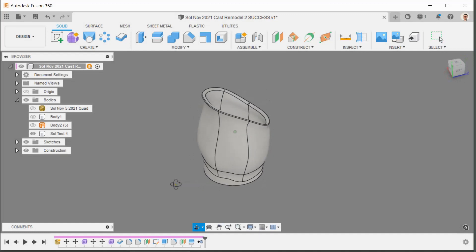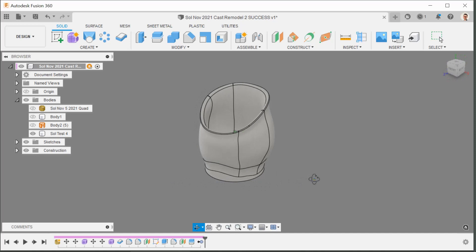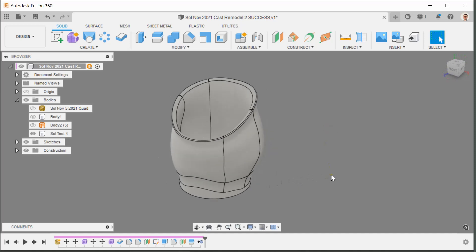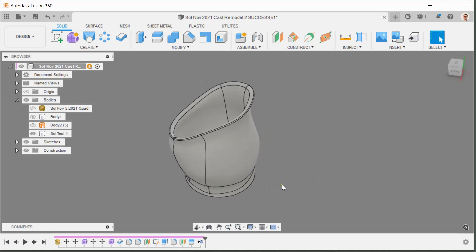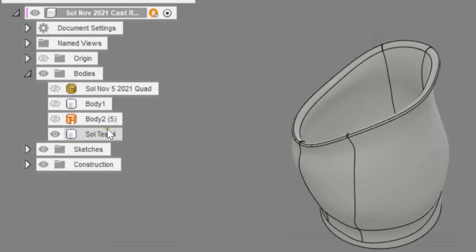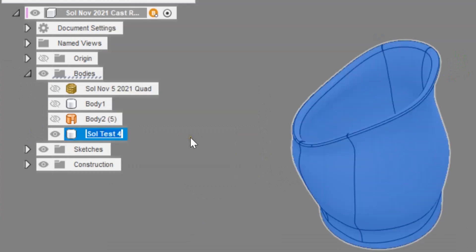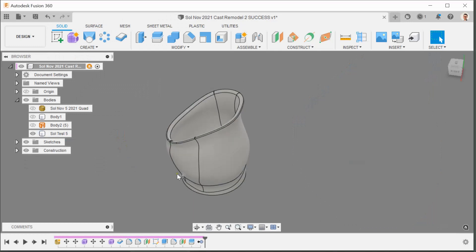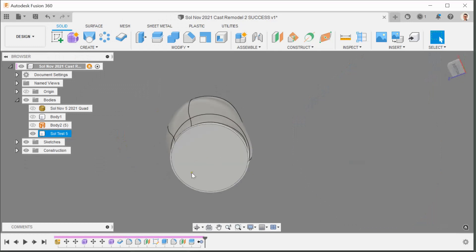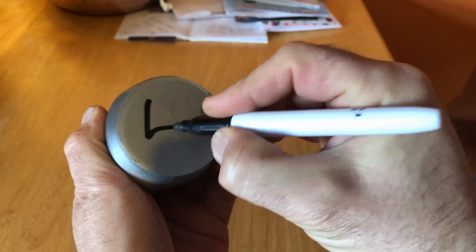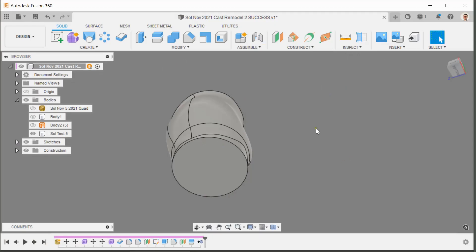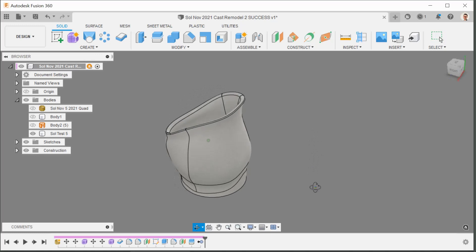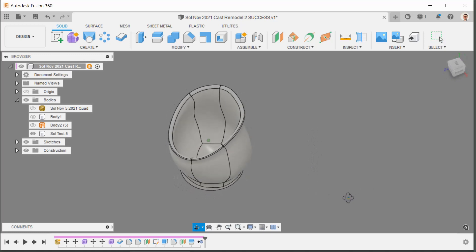Test sockets out of PLA take about 1 hour 50 minutes to 2 hours. Let's do that now, and when Sol gets home from school we'll compare version 5. That reminds me — change the name of the body. Version control is really really important. I write the number of the test socket on the bottom with a marker kept next to the printer. This is now test socket 5.